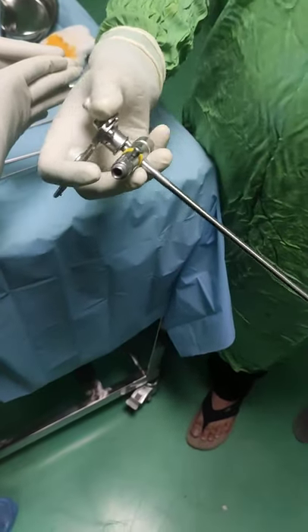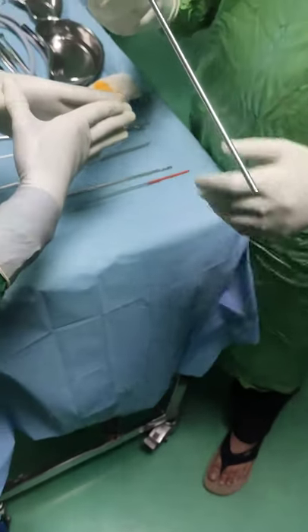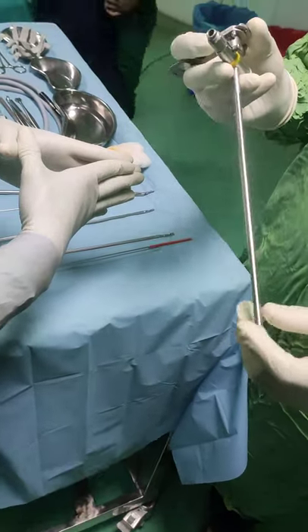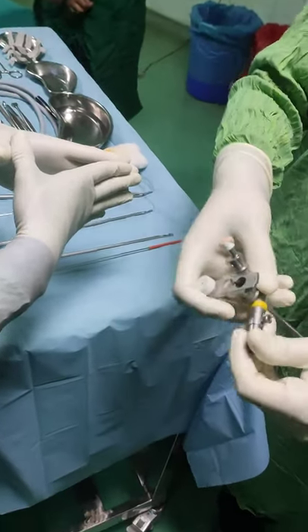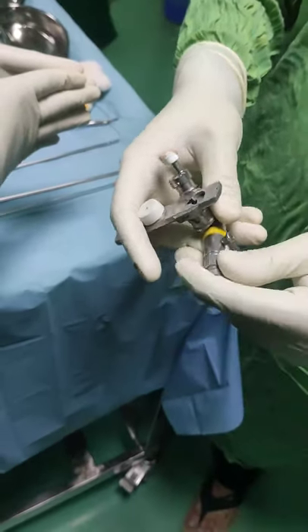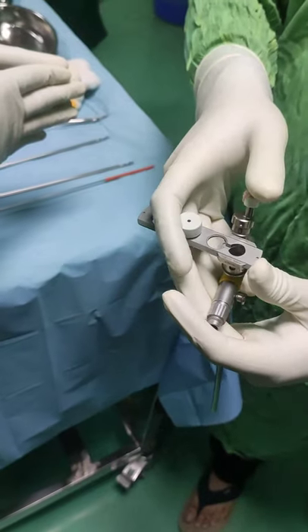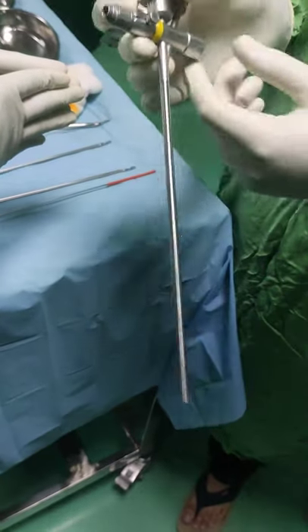Depending on the age of the patient, we decide the bronchoscope to use. To identify it, it has a prism and a port for jet ventilation.